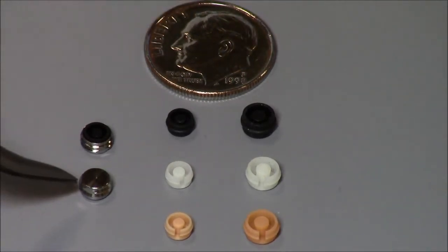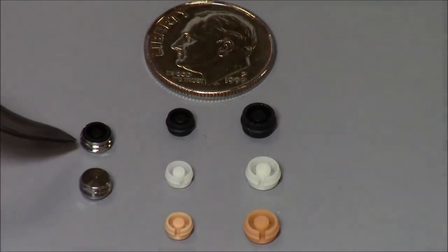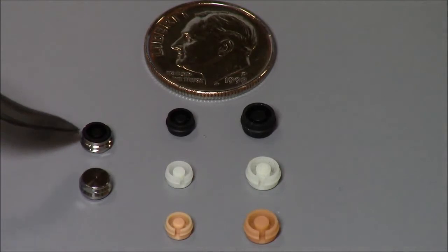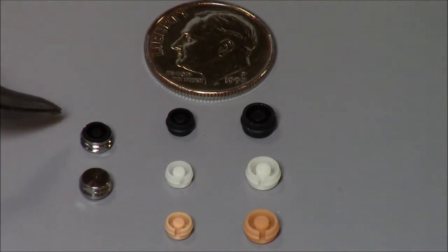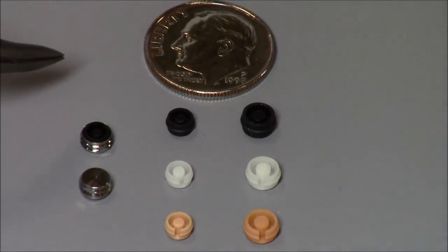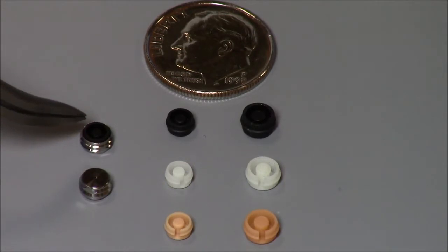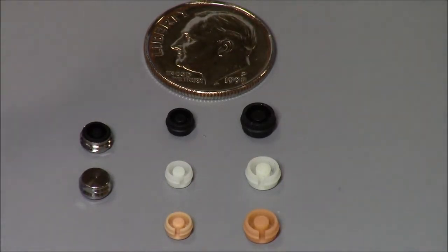And all of the ERA males come with an optional metal jacket. These metal housings are thin stainless steel housings, 0.2 of a millimeter thick on the occlusal and 0.3 on the side. So for all the versions of ERA, we have a metal jacket, and most people do choose to use those. They all come with the black male inside.